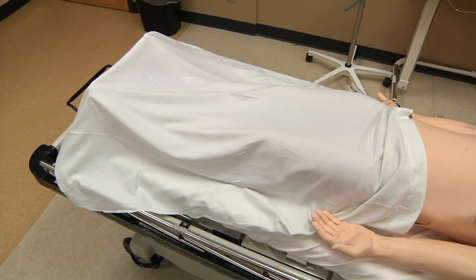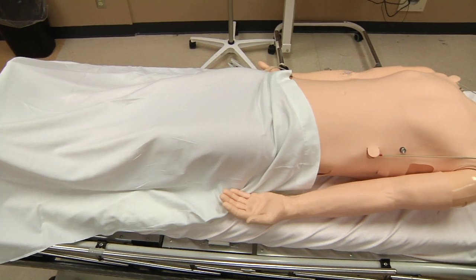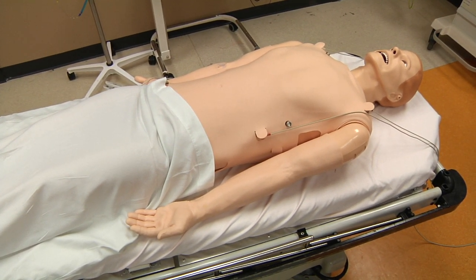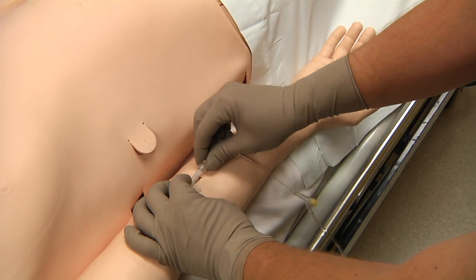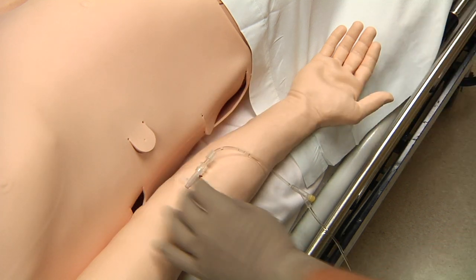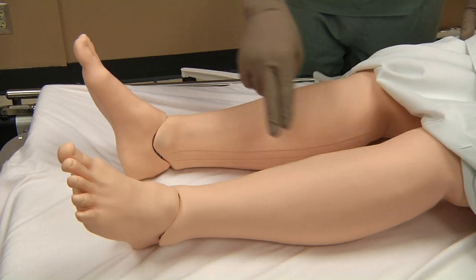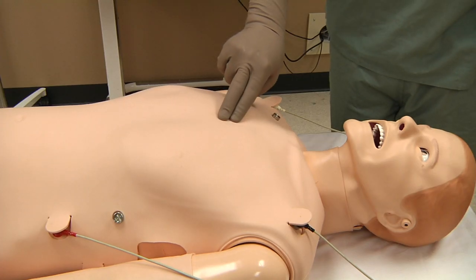In simulations involving trauma, active bleeding may be present and should be controlled as you would control any other bleed. To manage fluids, vascular access is possible through a pre-placed IV site in the left and right arms. Intraosseous access is also possible through the tibia and sternum.